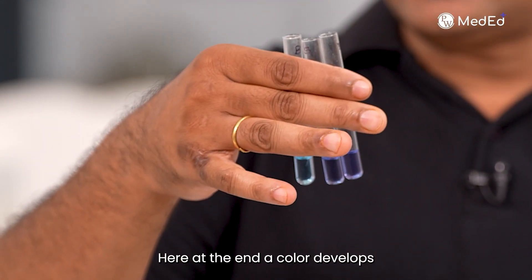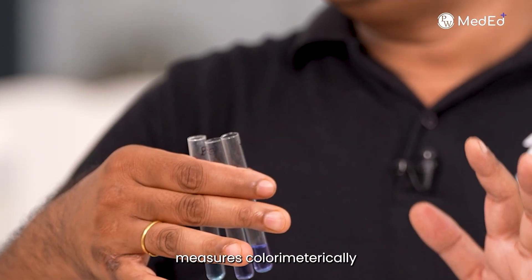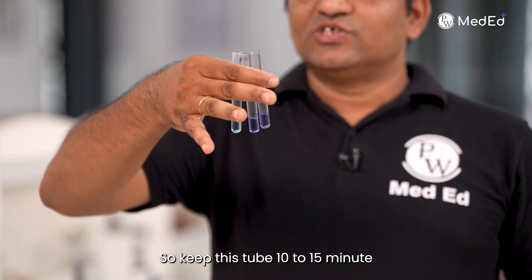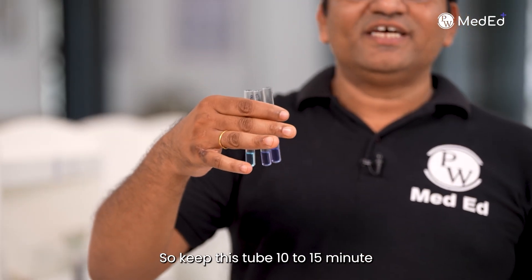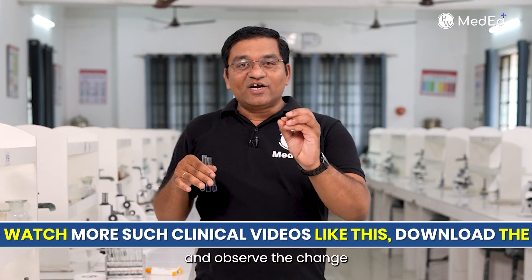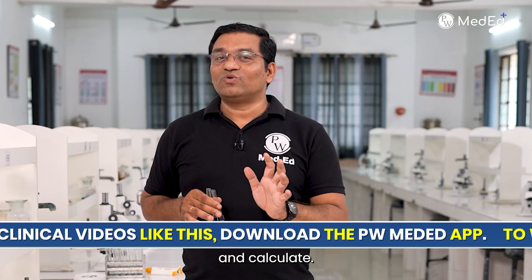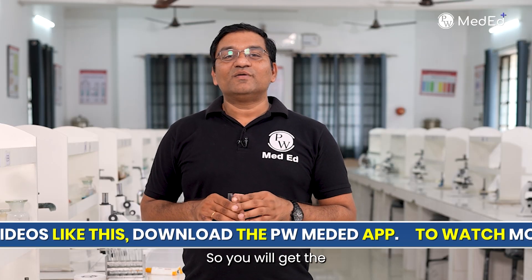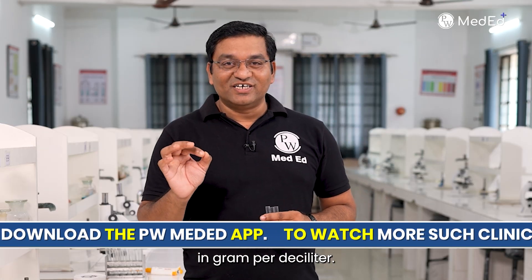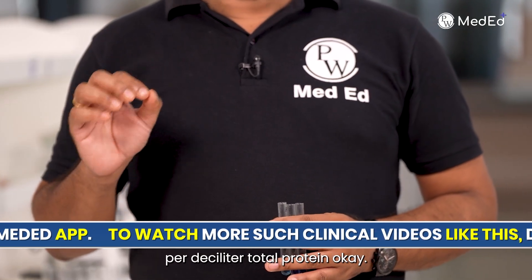This is an endpoint method. Keep the tubes for 10 to 15 minutes at room temperature and observe the change in optical density. Note that optical density and calculate — you will get the protein concentration in grams per deciliter.